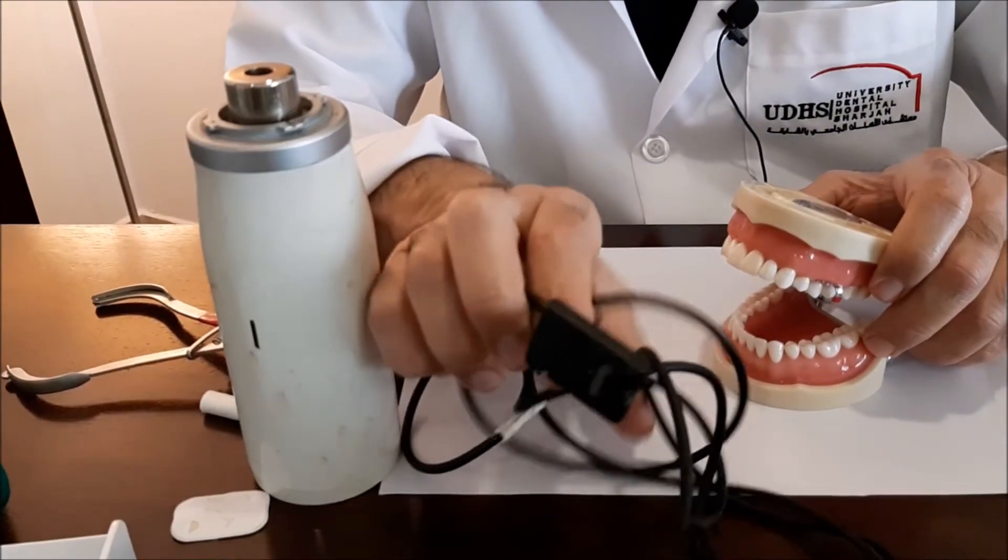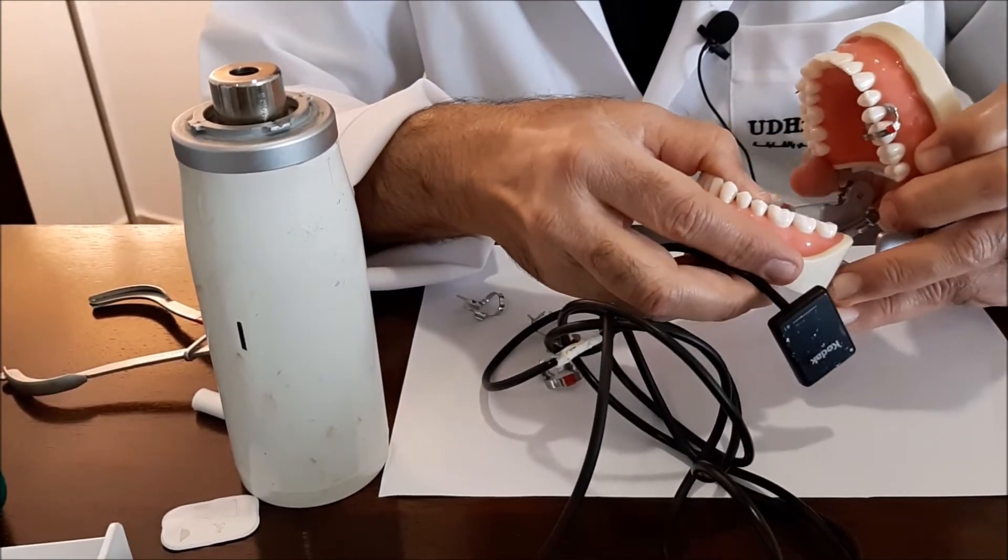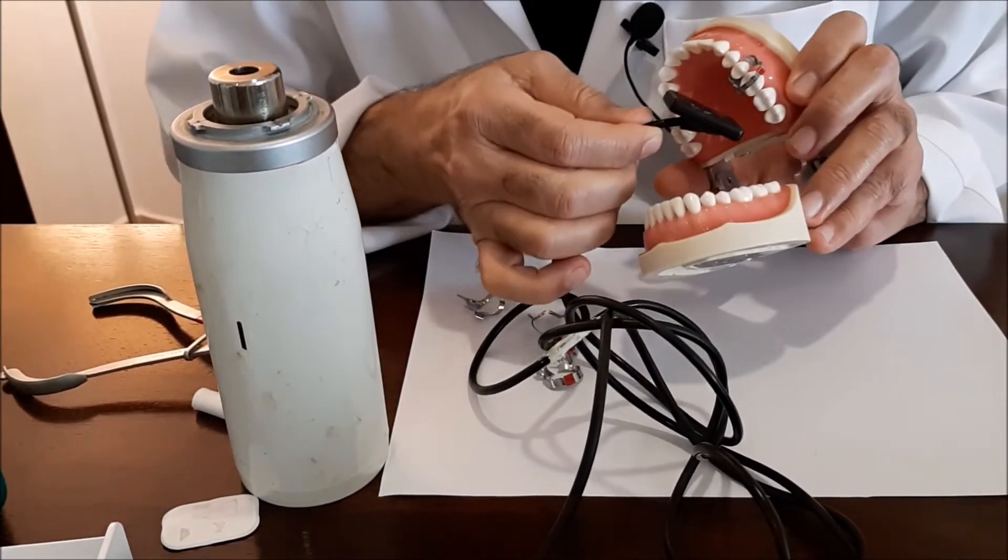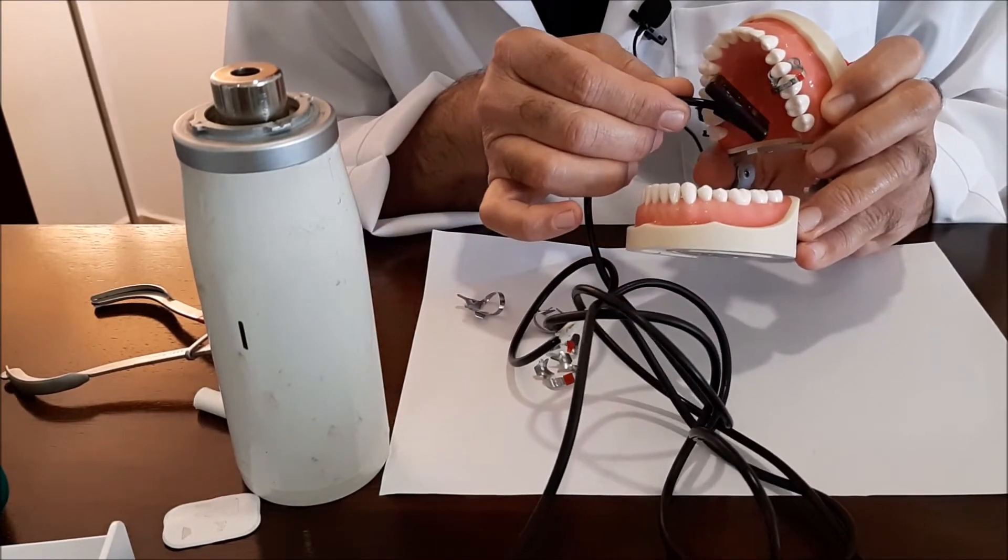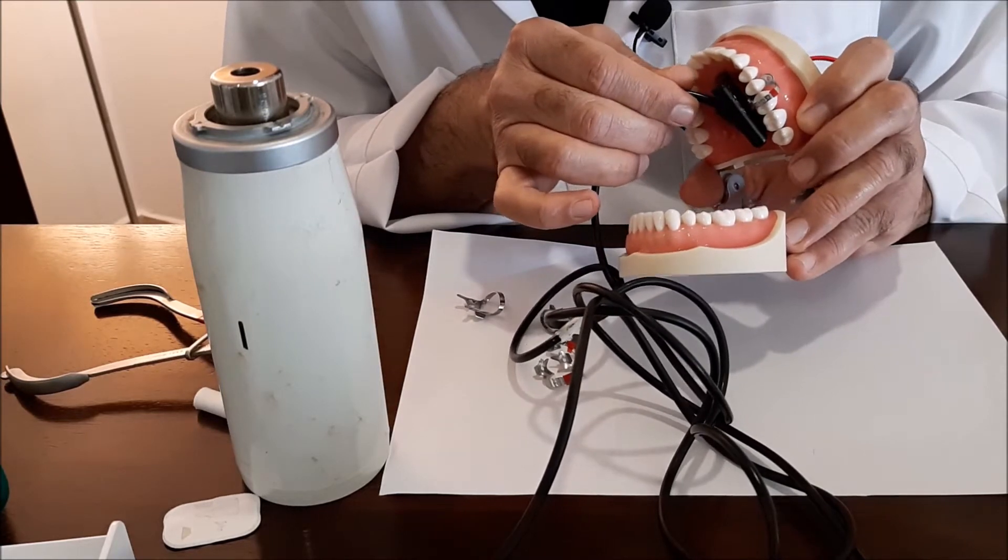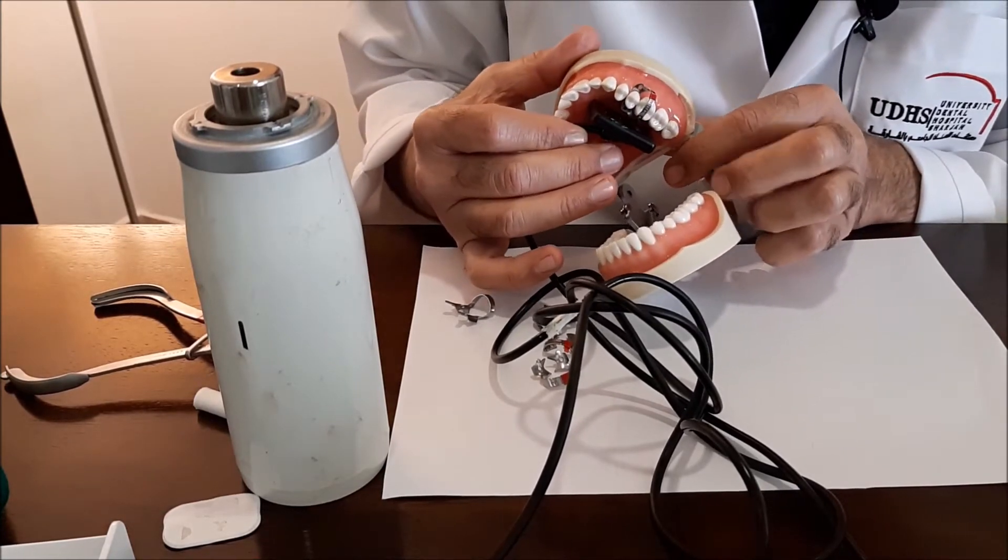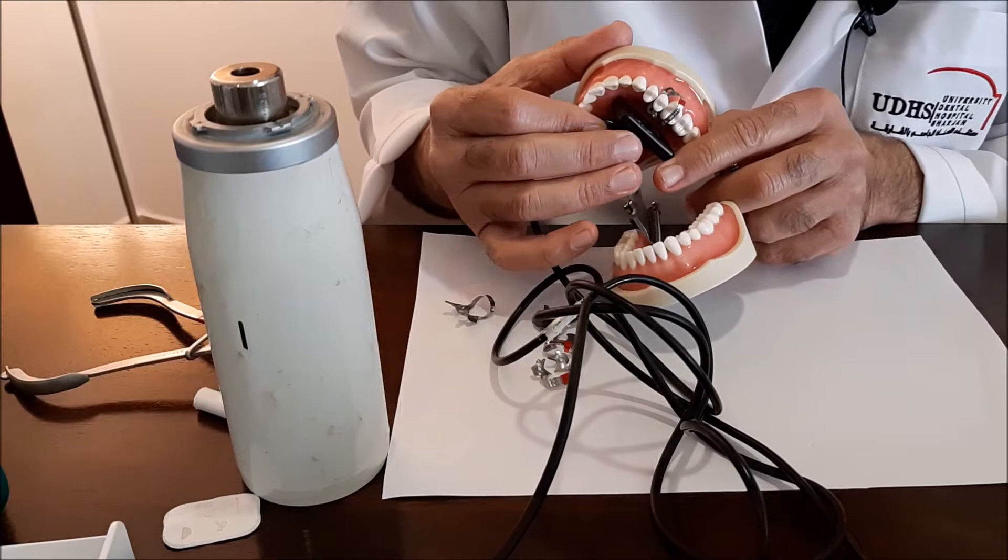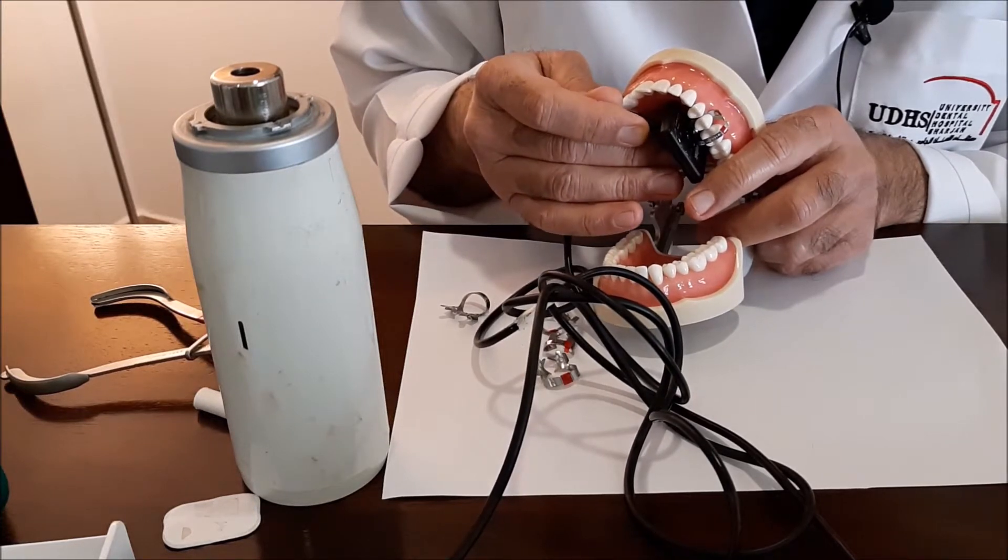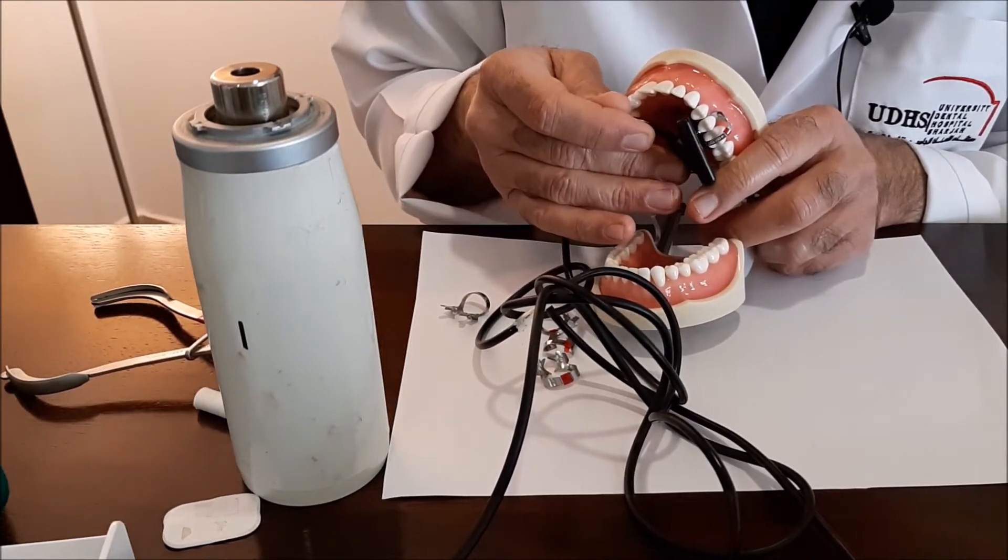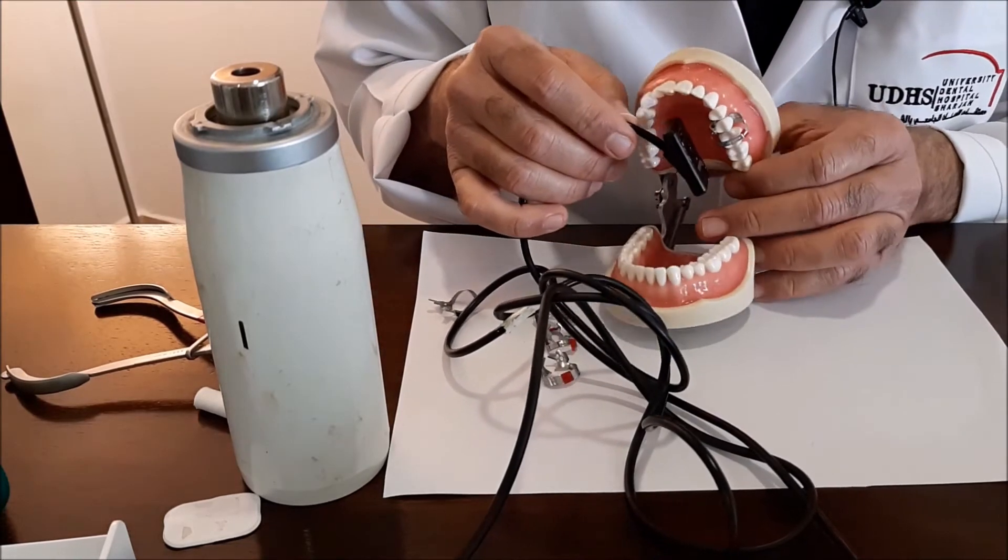Let's revise the scenario that is followed in these conditions. Ideally, we're using here the angle bisecting technique. You're going to place the sensor so that it will be in this direction, in this relationship. The sensor should be extending less than within two millimeters. What happens is that the sensor will be pushed by the palate so that it slides down and then you will lose the apex.